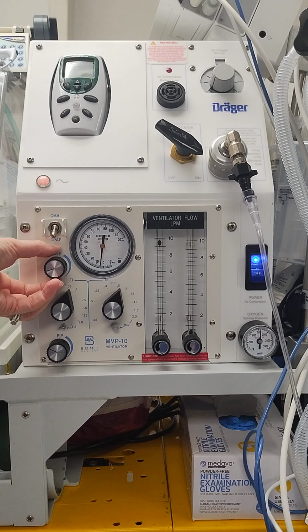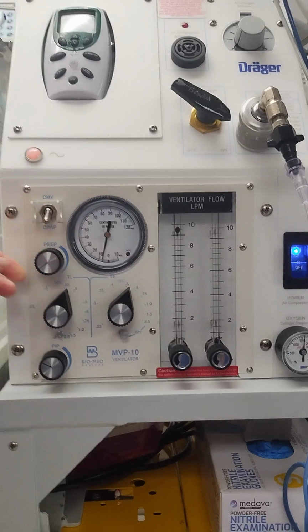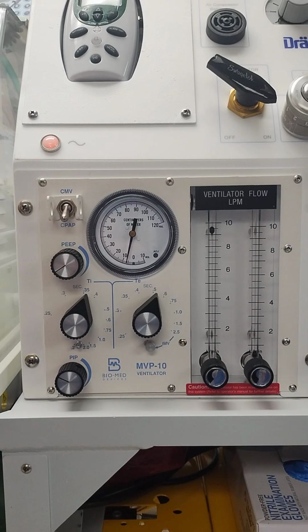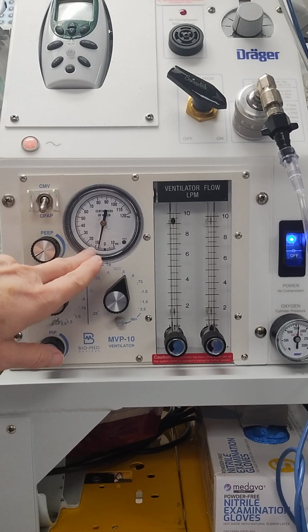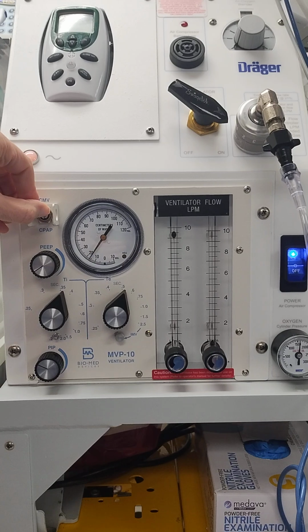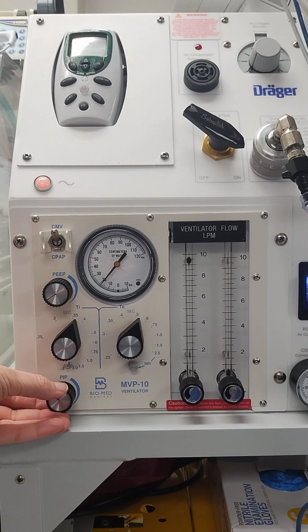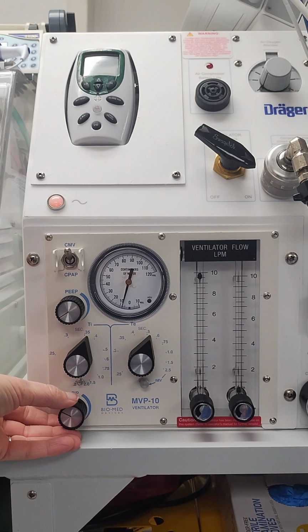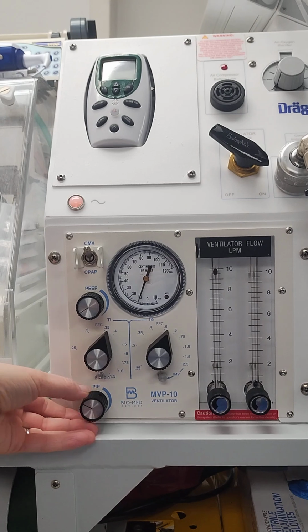If you want to increase the amount of PEEP that you're providing, you're going to turn this counterclockwise, and we see here we increased our PEEP to 5. I like to switch it over to CPAP before I set my pressure PIP level, just that way I know exactly where my PEEP is. And then we switch it over to our CMV, and here we're going to dial our PIP, so you can see with a very gentle turn of the knob, we're adjusting our peak pressure. So that looks like it's about 22.